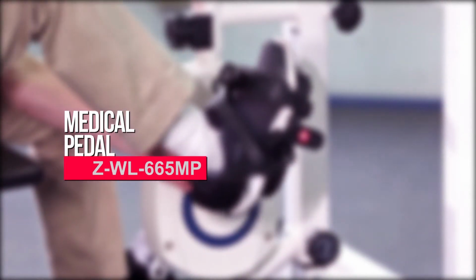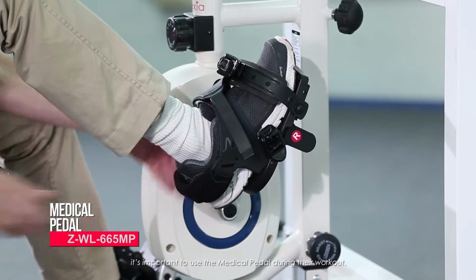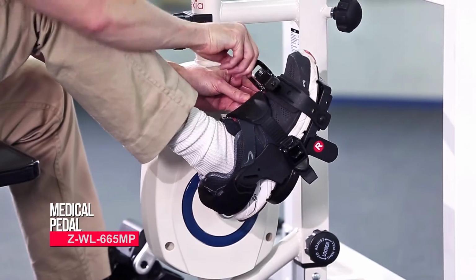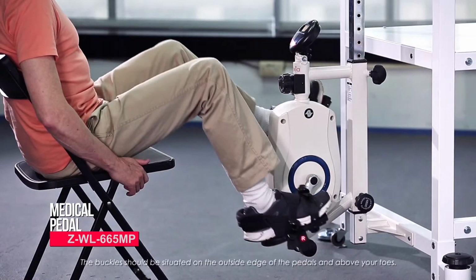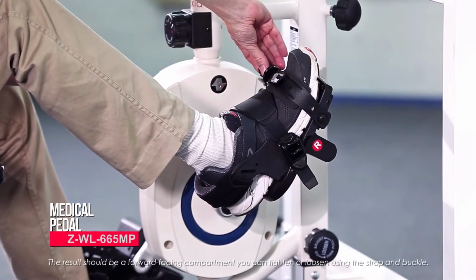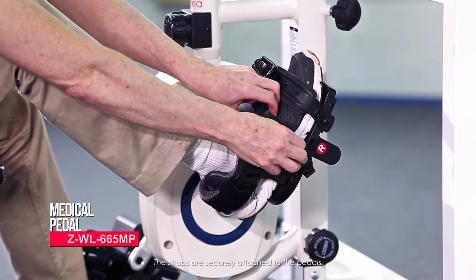Medical pedal. If a user cannot keep their foot properly on the pedal, it's important to use the medical pedal during their workout. Foot straps are incorporated to help secure both feet on the pedals. Pull the ring of the buckle upward to tighten the pedal strap. The buckle should be situated on the outside edge of the pedals and above your toes. The result should be a forward-facing compartment you can tighten or loosen using the strap and buckle. The straps are securely attached to the pedals.